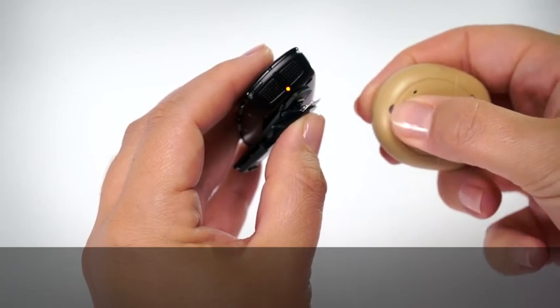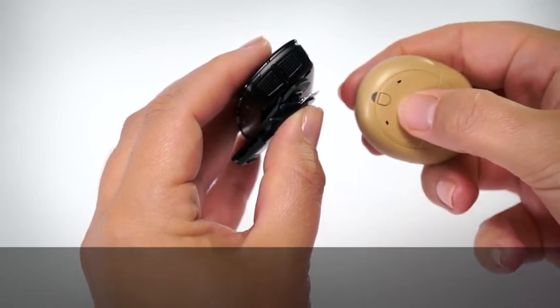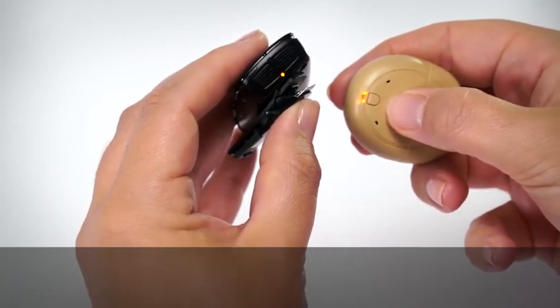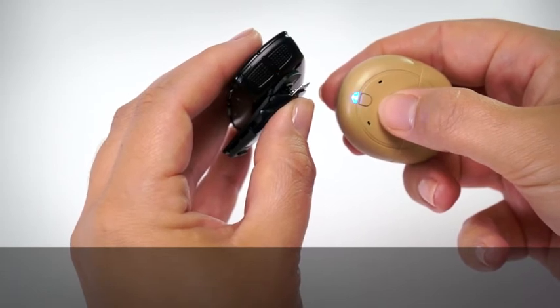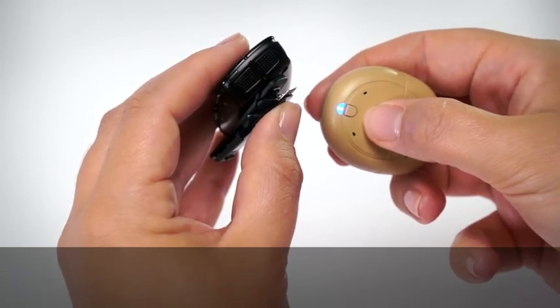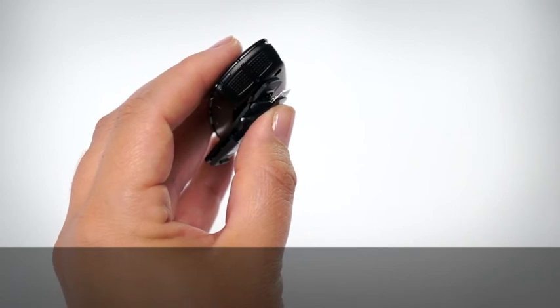You must turn on your processor during this 20 second window to pair it with the Mini Microphone 2 Plus. The light on the processor briefly flashes blue to tell you pairing has been successful.